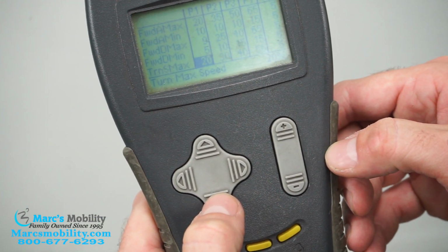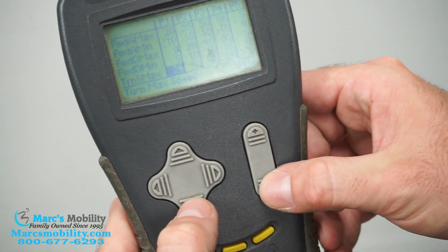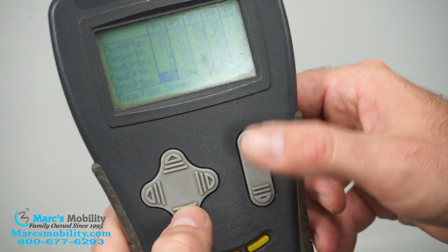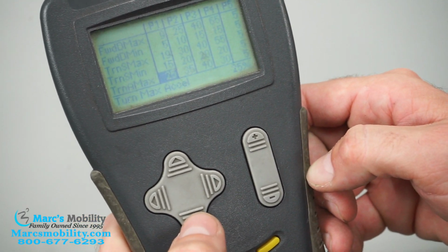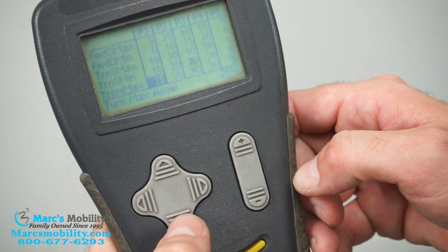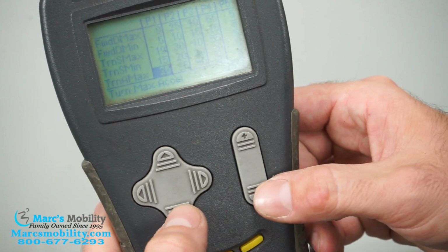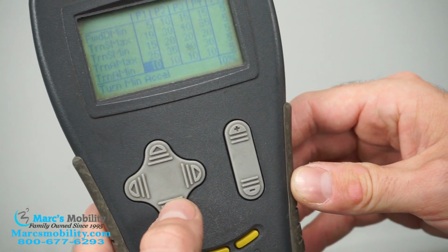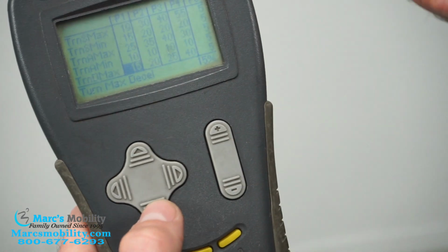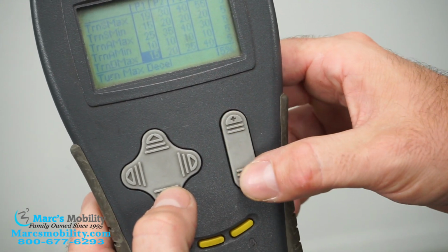You keep going, and then you have a turn max speed. So again, you go up if you want it to turn faster, you go down if you want it to turn slower, and you're going to have a maximum and a minimum again for each profile. Okay, and you've got acceleration just like you do with all the other ones for how fast you want it to start turning. Again, up if you want it to start the turn motion faster, or down if you want it to take a little bit to get going. And turn D again is going to be how fast it stops. So up for faster, down for slower.